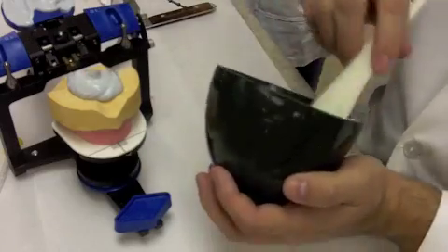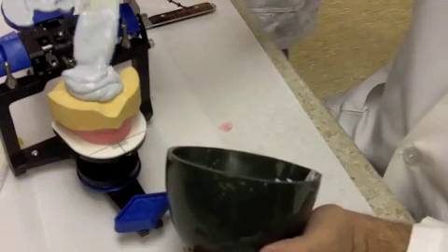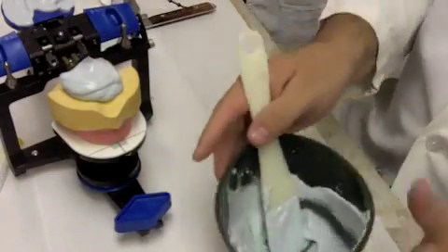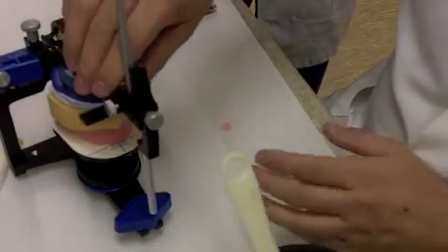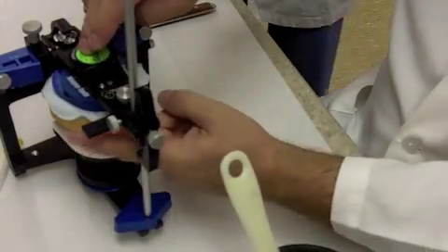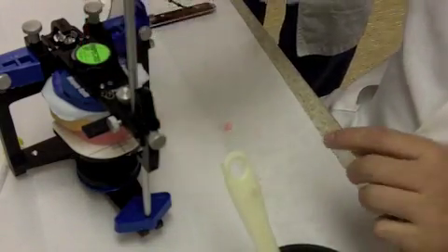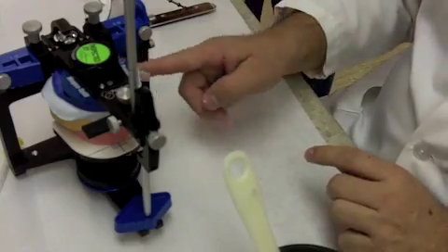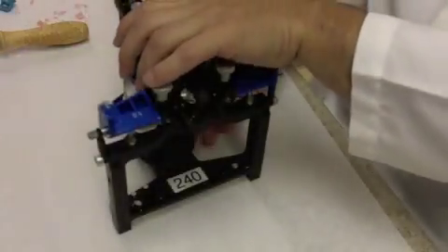You want to do one of two things. Most of the time you want to add just a little bit and then close the articulator down and then add a little bit more as almost a veneer. In this situation I've added plenty of material to cover the entire surface because there isn't a whole lot of space between this particular cast and the mounting plate. So I made sure the pin was set at 0, and now I'm just going through and cleaning off the excess material that's flowing out.